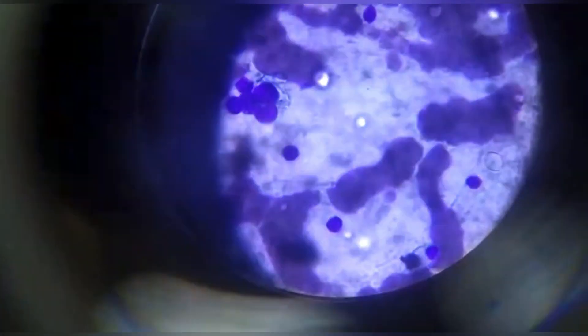We, as pathologists, use slides to diagnose diseases such as cancer. By examining the cells, we can identify abnormal changes that may indicate the presence of cancer or other diseases.